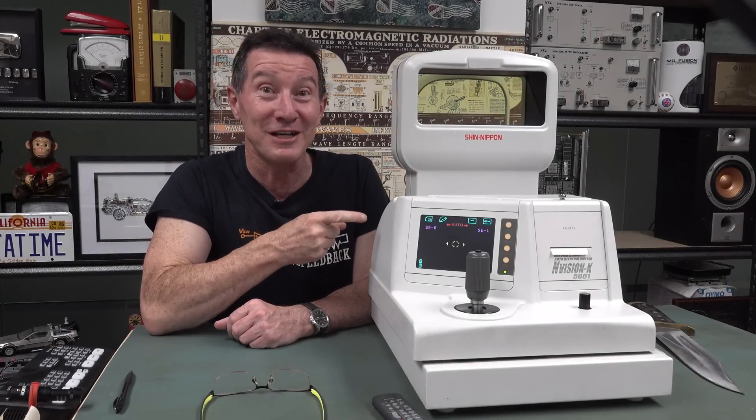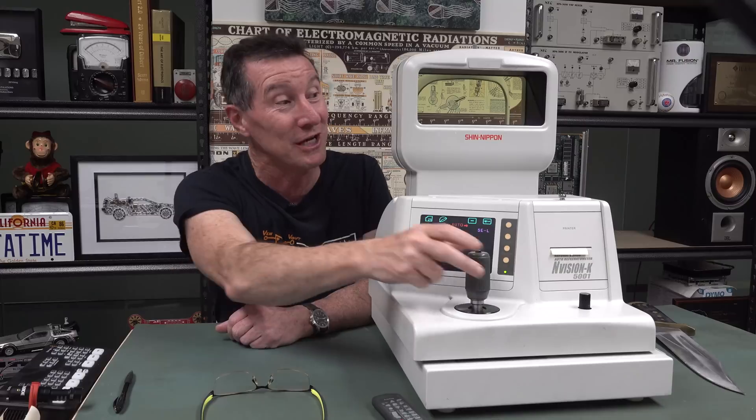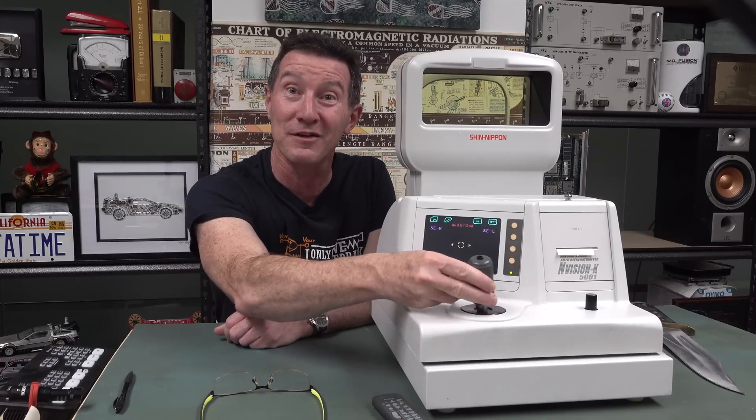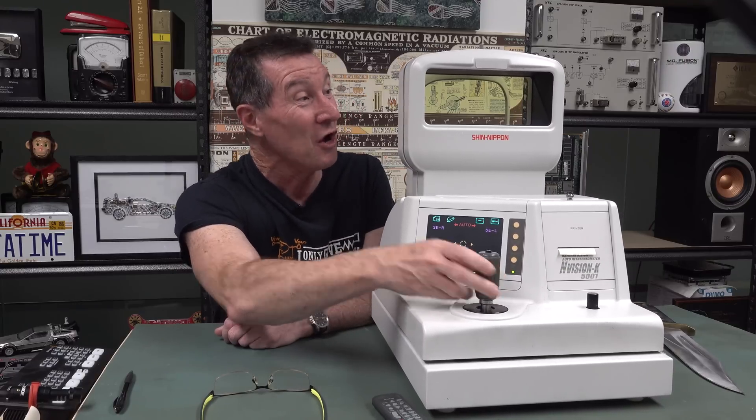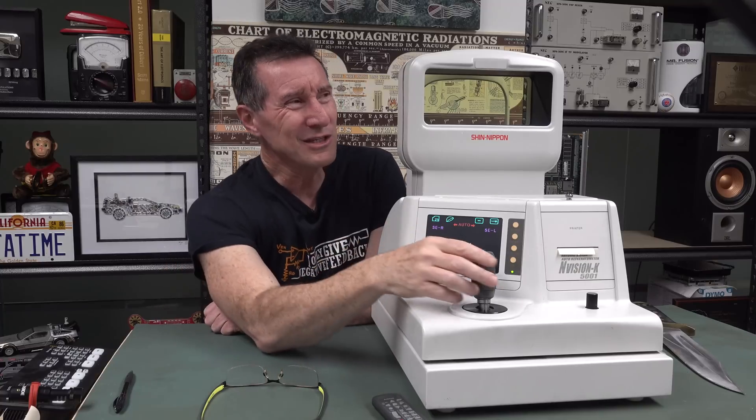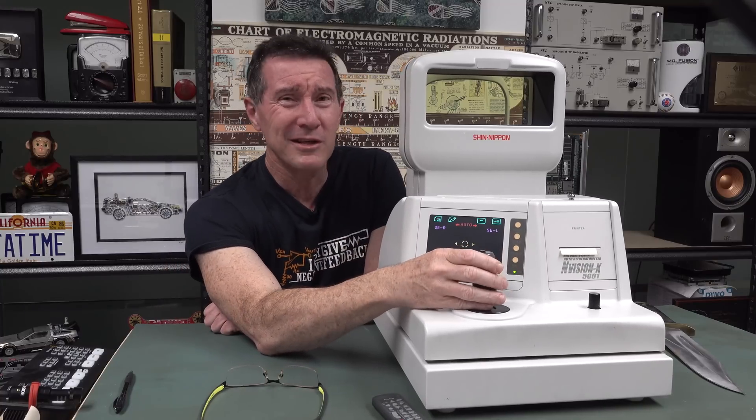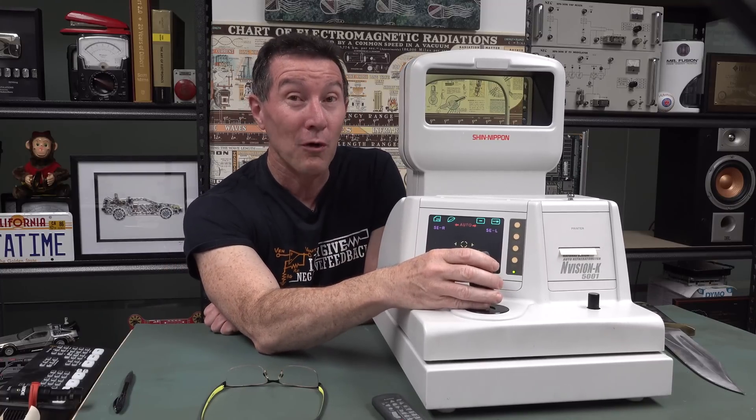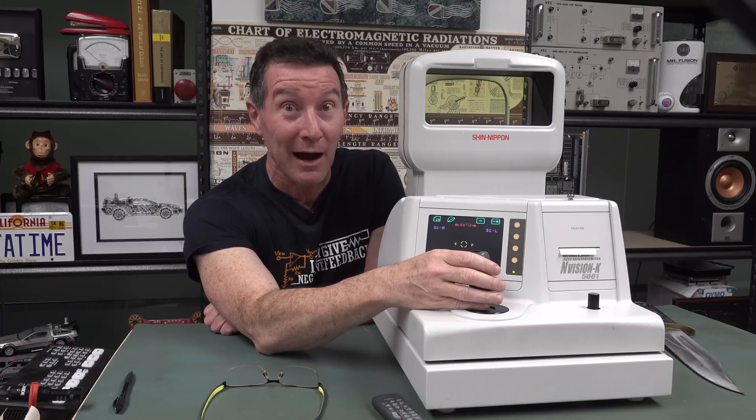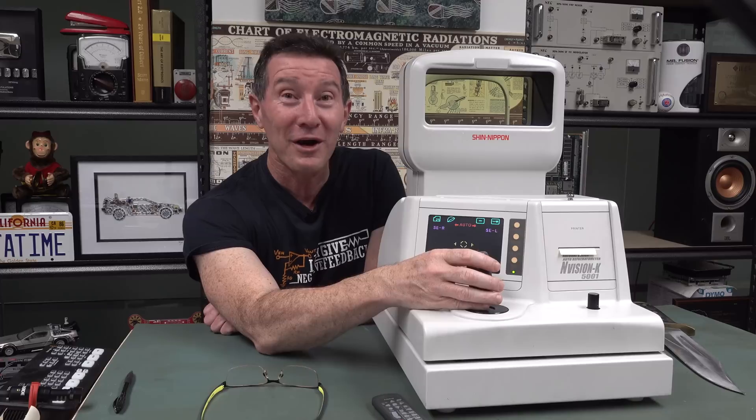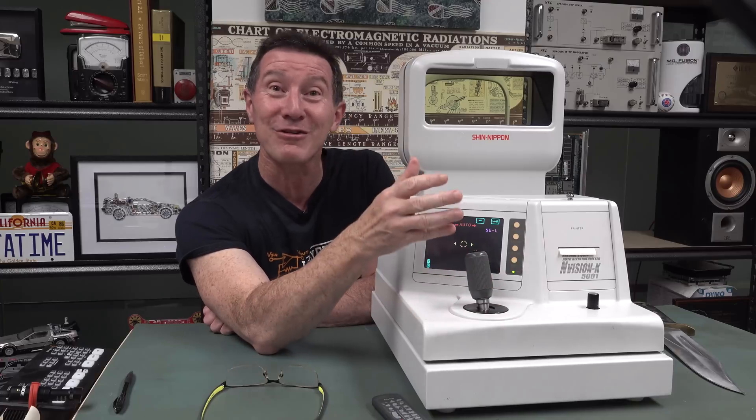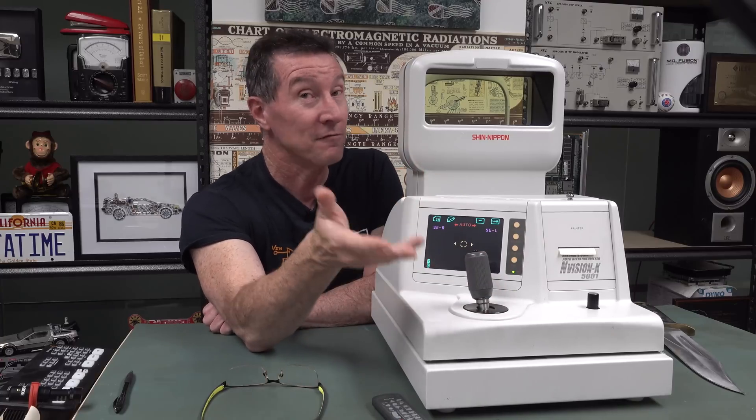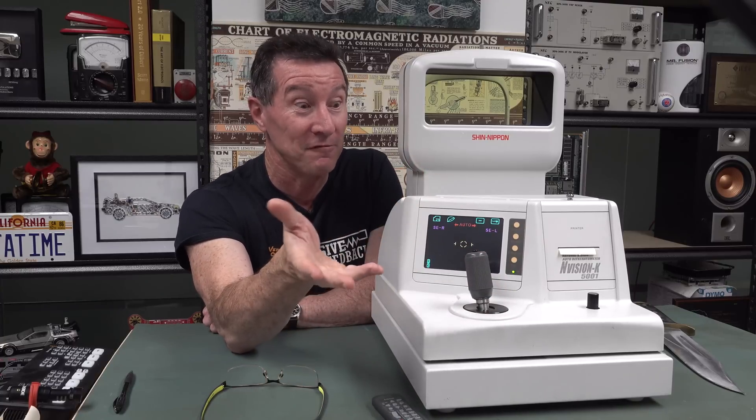Hi, I've got a really interesting industry bit of kit for you today, and no, it's not a 1980s arcade machine or computer, even though you might think so with this funky joystick here. So what is this weird bit of kit? Well, it's called, wait for it, an autorefractor keratometer. Gesundheit. Autorefractor keratometer, or keratometer for those keratometer fanboys.